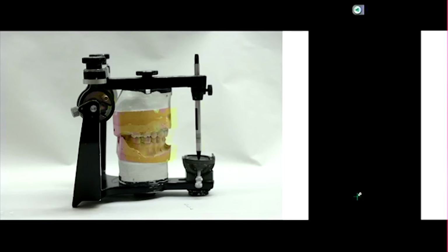All right, so let's finish up on the boards. I bring this up because it's in your Mosby's board review, and sometimes they'll ask about it. This is the idea of Arcon and non-Arcon articulators. You guys remember that from first year? What's the difference between Arcon versus non-Arcon?